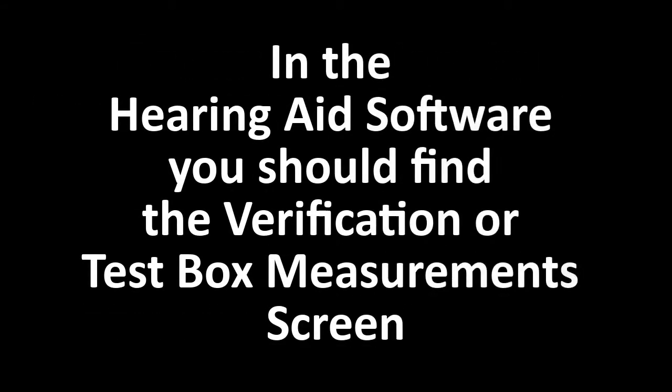In the hearing aid software, you should find the verification or test box measurement screen. This easily allows you to set the hearing aid to maximum gain or reference test gain.